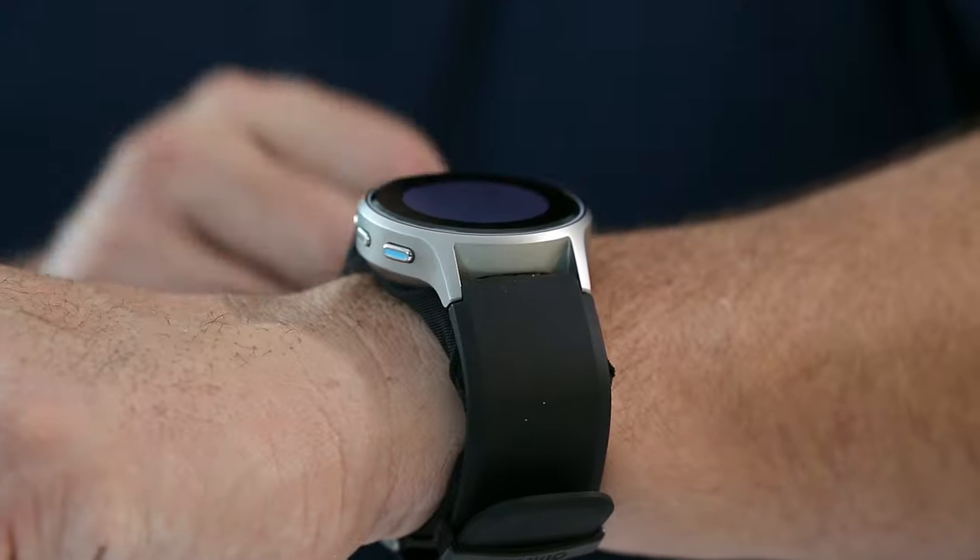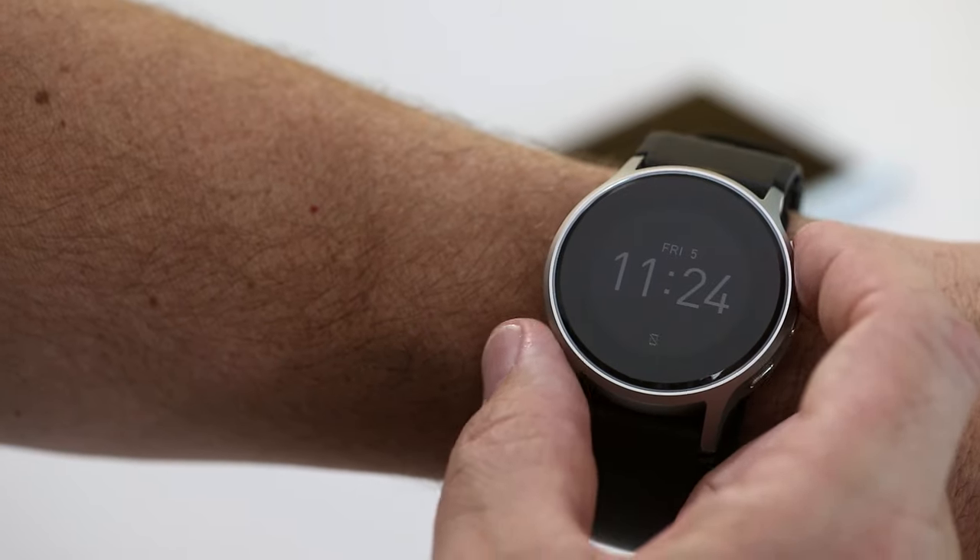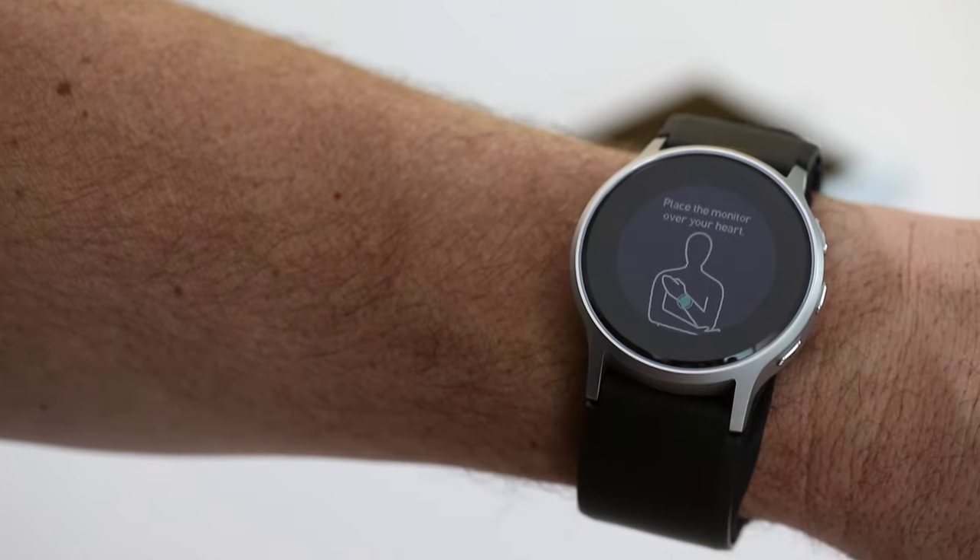After following these steps, press the Start button on the side of the watch to begin measurement. Once the posture screen appears, raise or lower your wrist until it is at heart level.